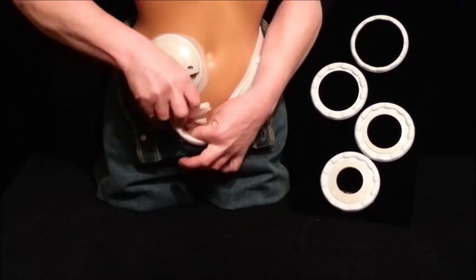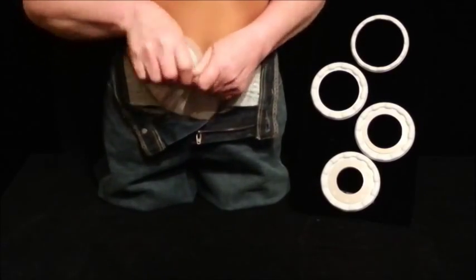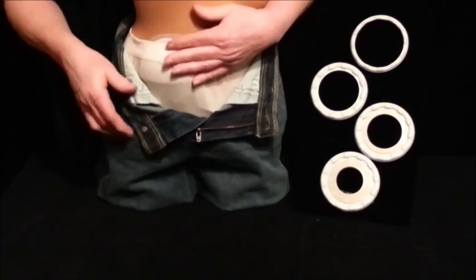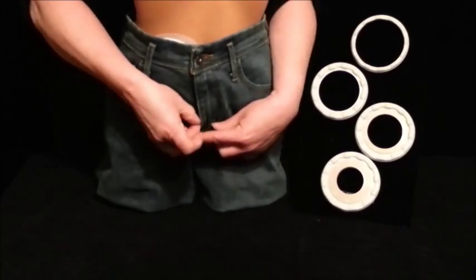The short cup is easy to disguise under a waistband and allows the pouch to fill even while sitting and further prevents harm to your stoma.